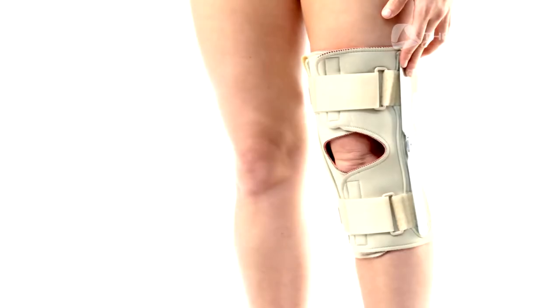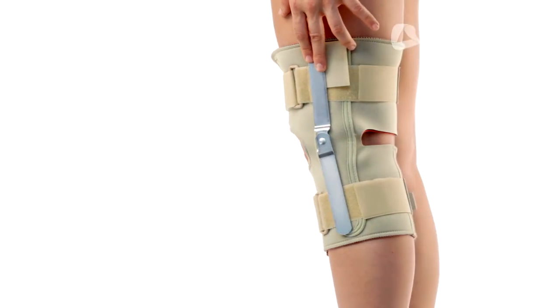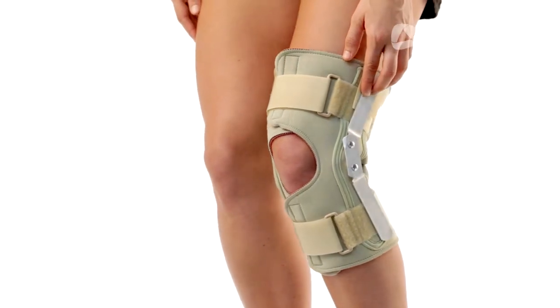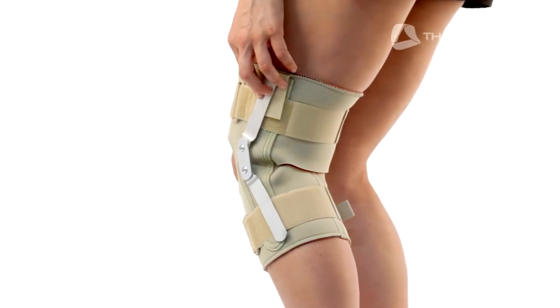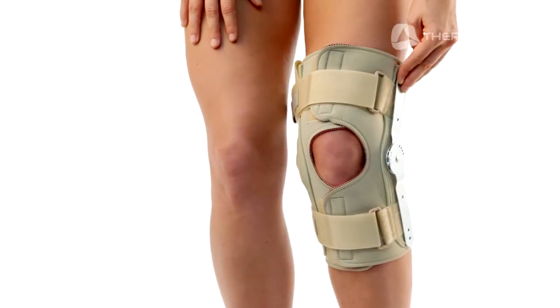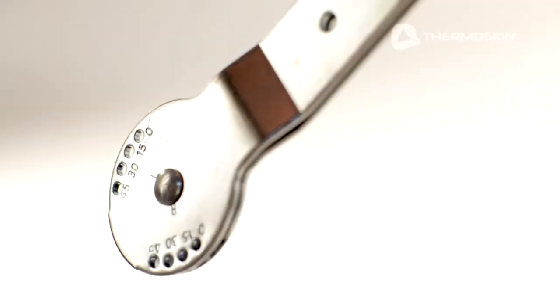The single pivot hinge is designed for flexible unilateral bracing and provides a hyperextension stop at zero degrees. The dual pivot hinge is suitable for most instabilities of the knee; it permits functional mobility while ensuring support and stability following medial and lateral injuries, as well as post-operative ligament or meniscus repairs. The range of motion hinge offers exceptional support and stability after knee surgery and through post-operative rehabilitation.